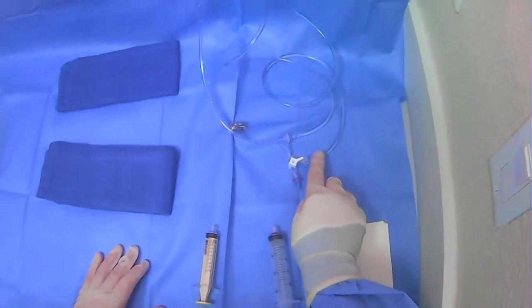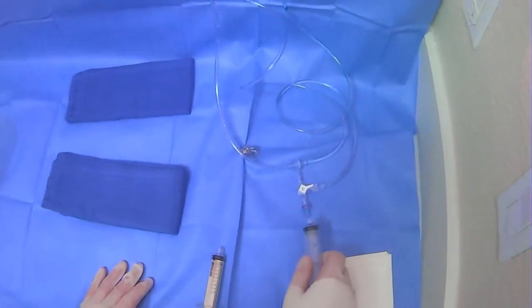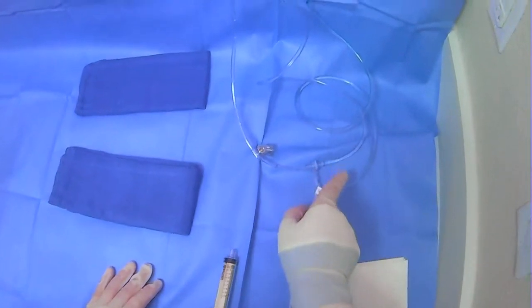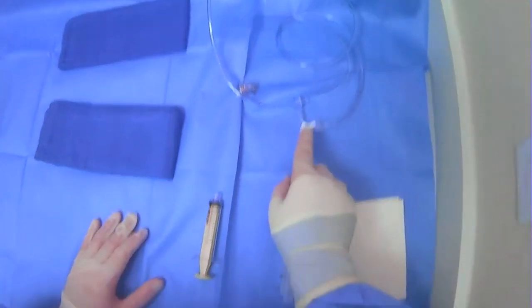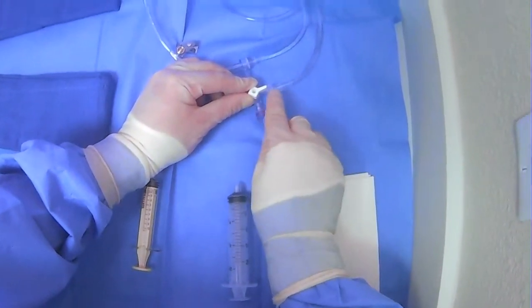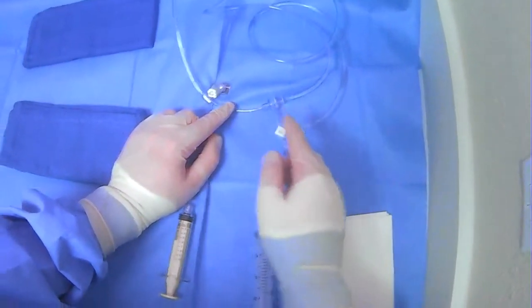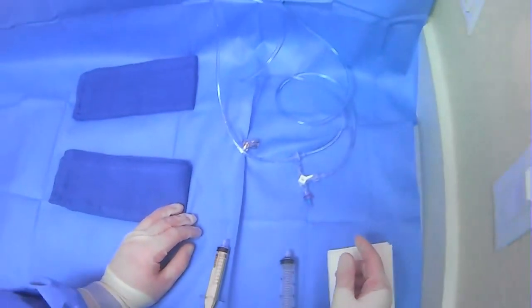This line here is for contrast — you can trace it back. Here is where you'll plug in your syringes, and this line here is for flushing. This is a one-way valve where you'll pull in and then it will flush out. The stopcock is important — when the handle is pointing in a direction, that's where it's closed. In this orientation, you draw from the saline line, and when you push, you flush into the waste bag hanging over the edge of the table.